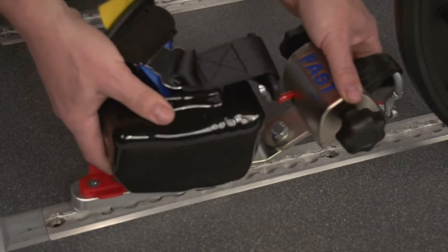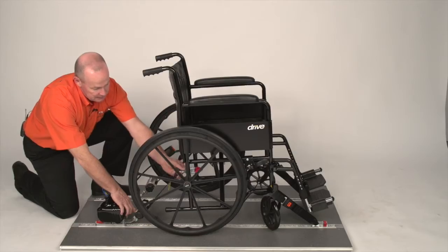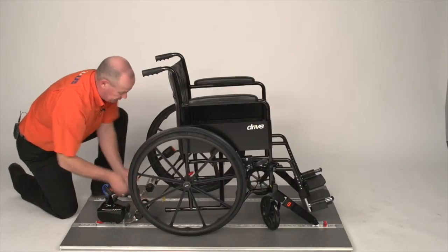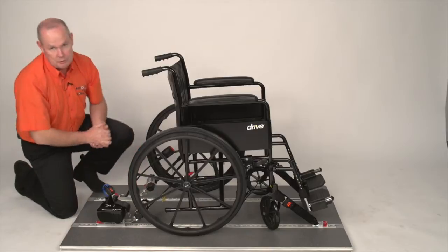Same for the inertia side — press the red lever down, attach to the mainframe of the wheelchair. To tighten this up, take the handles and turn towards the wheelchair as far as you can. Two or three clicks is usually enough. That is the wheelchair secured.